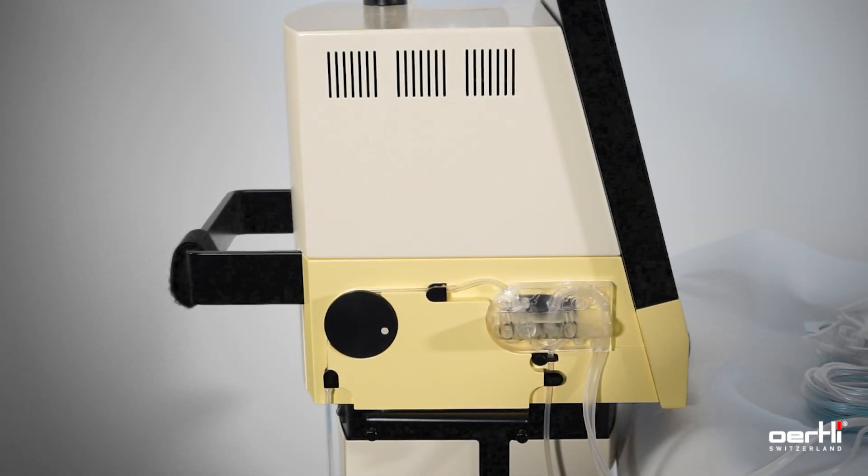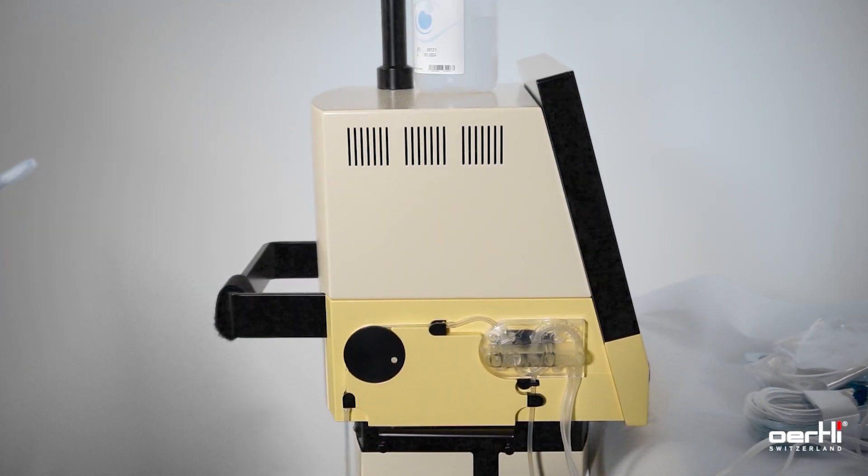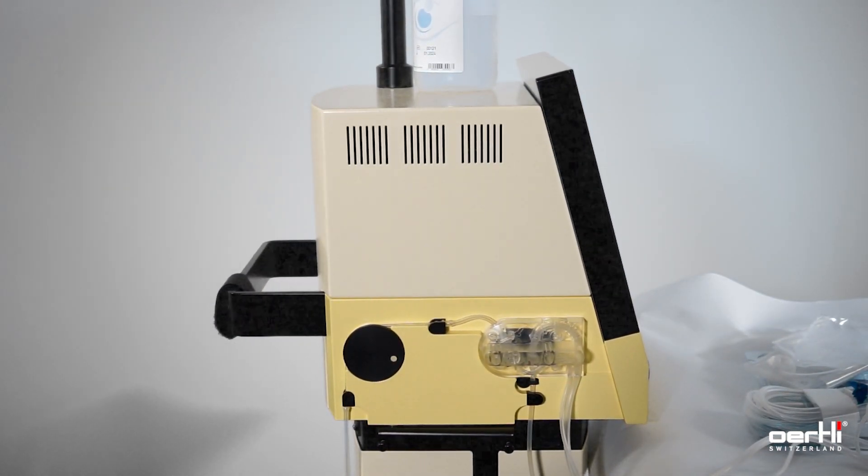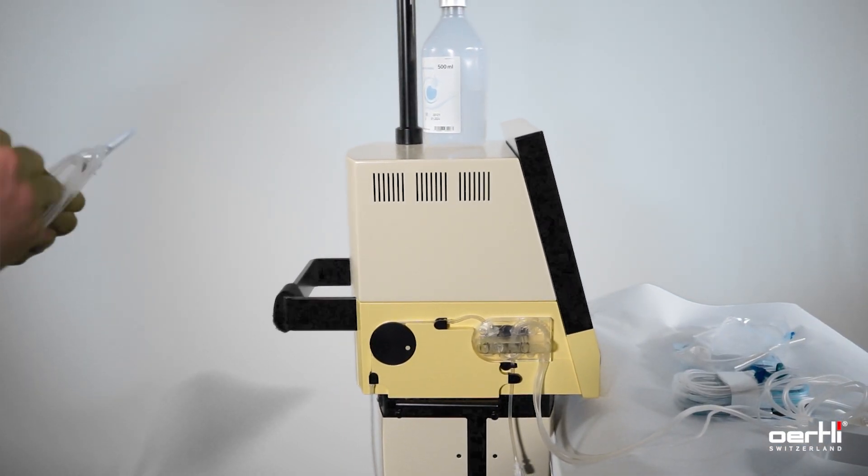Hand over the infusion line. Connect the infusion line with the cassette system first.